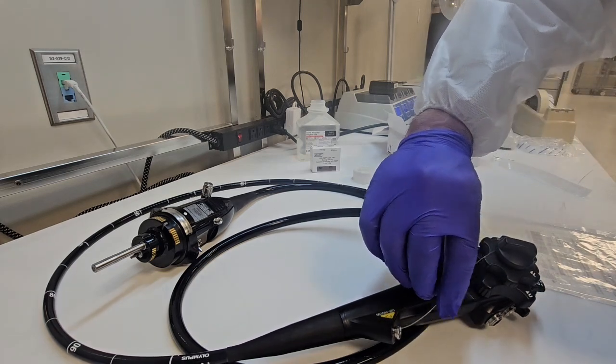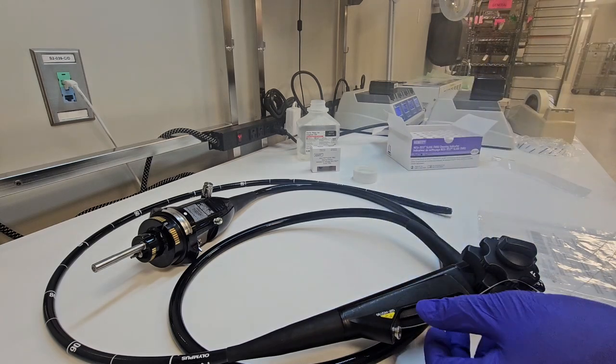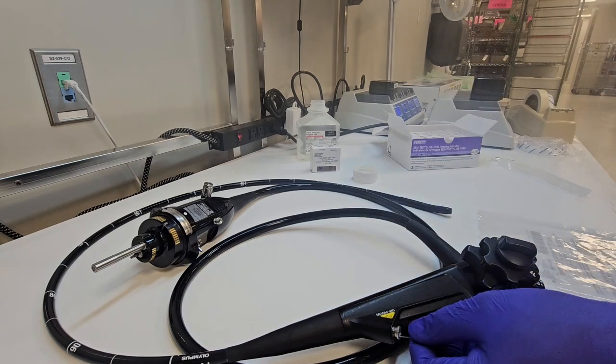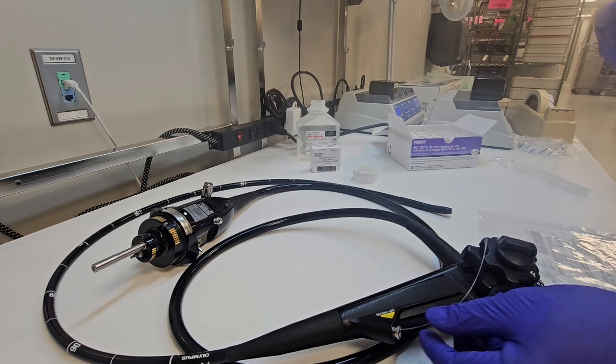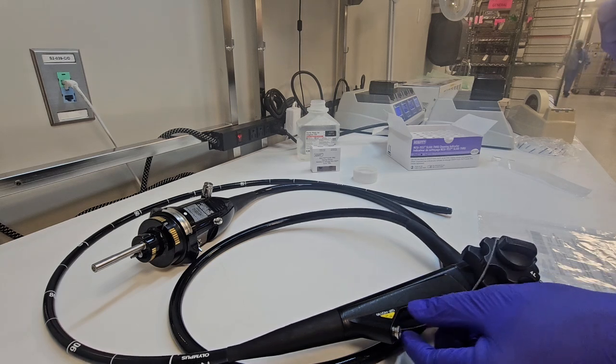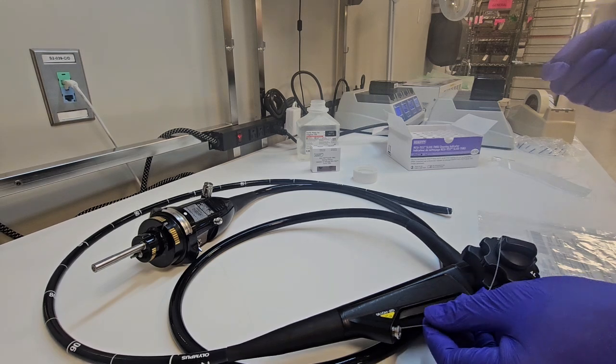So make sure that you definitely flush out those channels prior to doing any cleaning verification. It's just my opinion and that is my suggestion to get the best possible results and the truest results of your test.